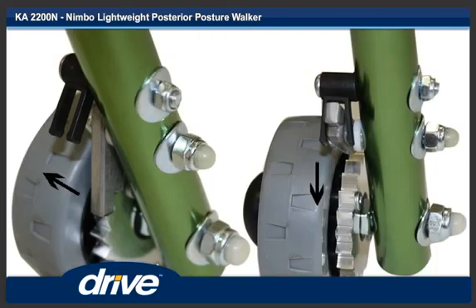Step 13. To disengage the anti-reverse ratchet, swing it up until it engages in the override bracket. To engage, push the anti-reverse ratchet away from the override bracket.